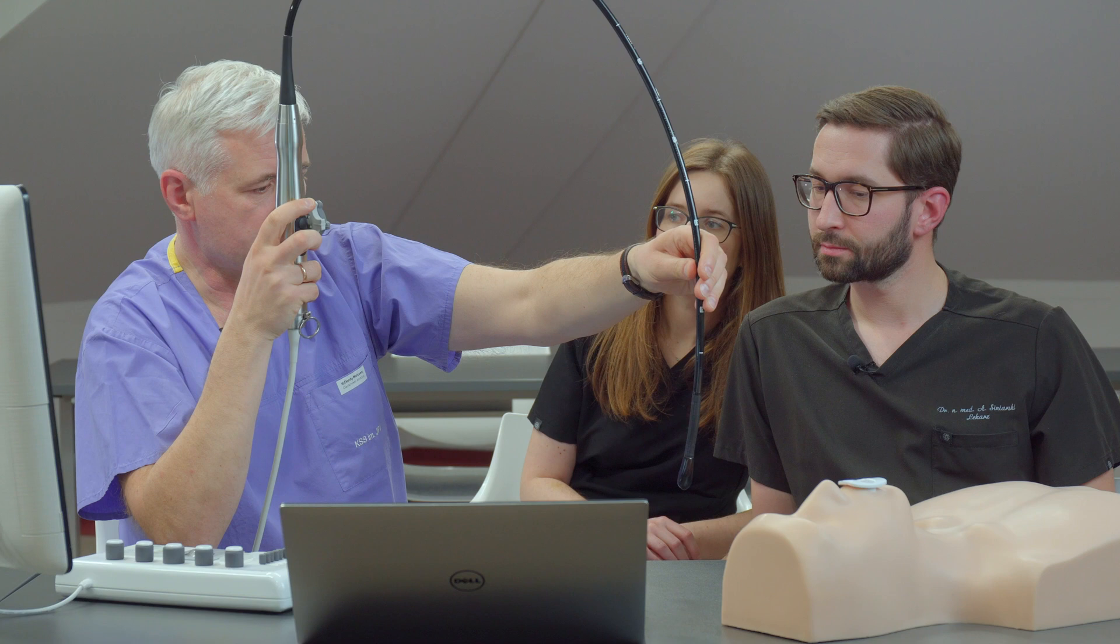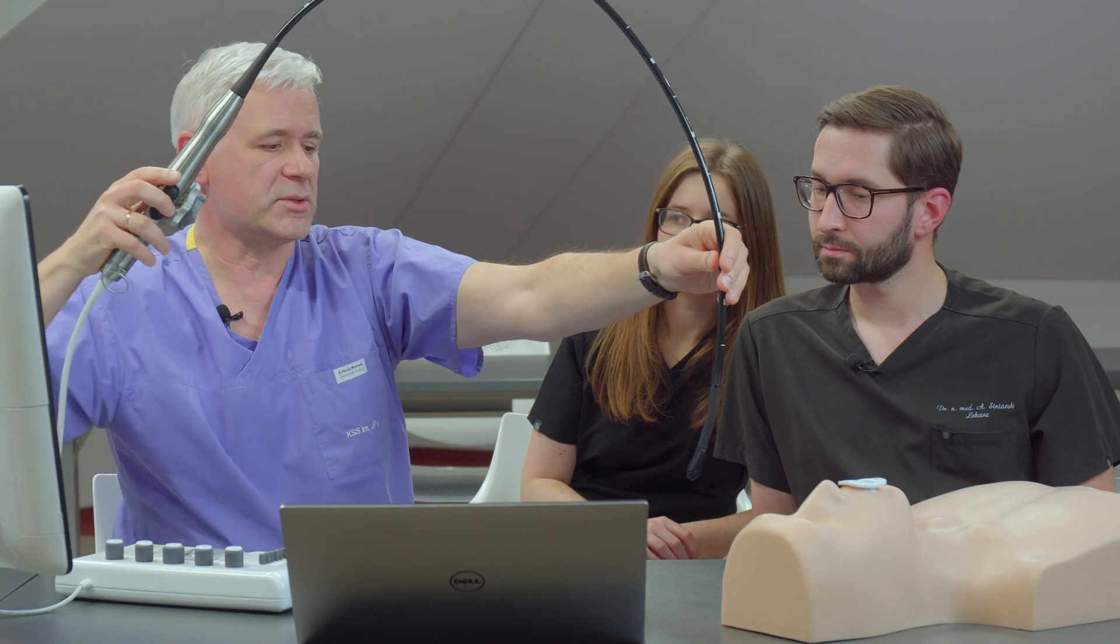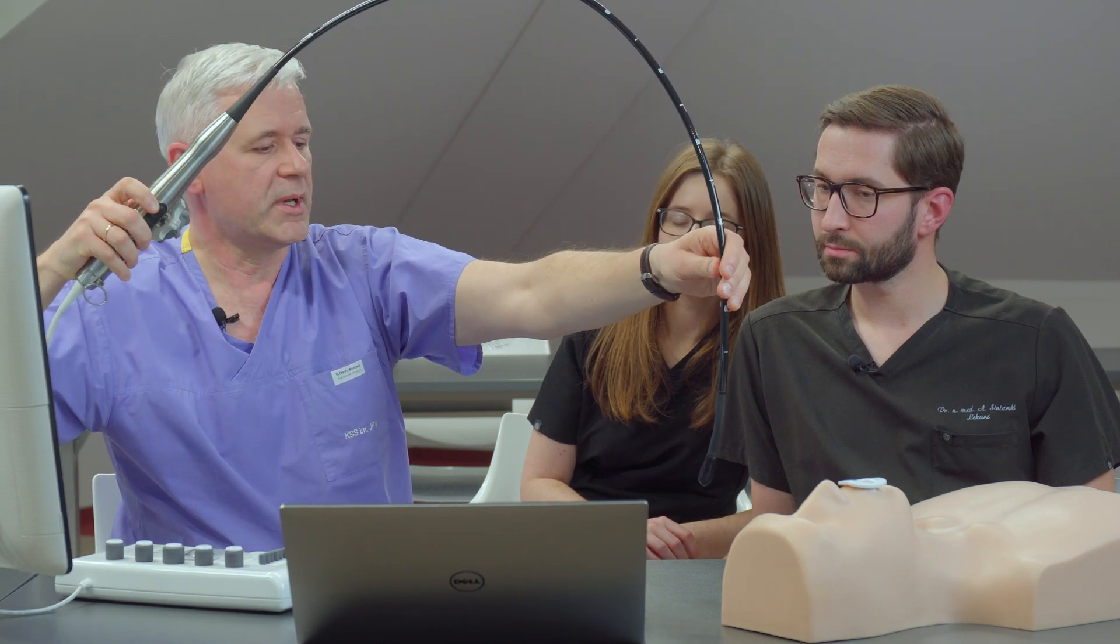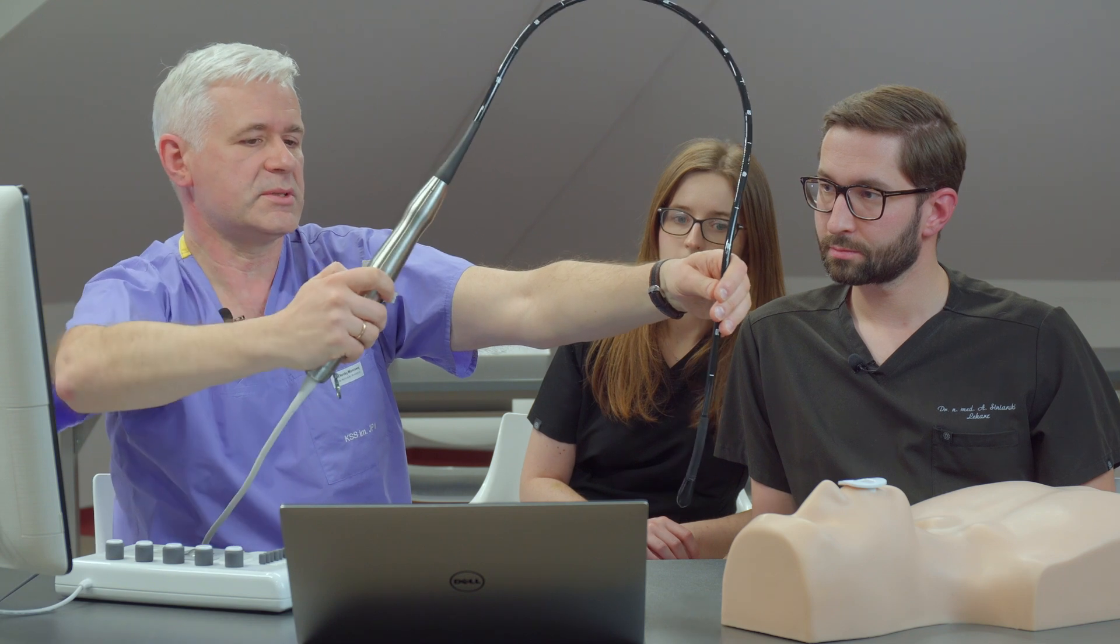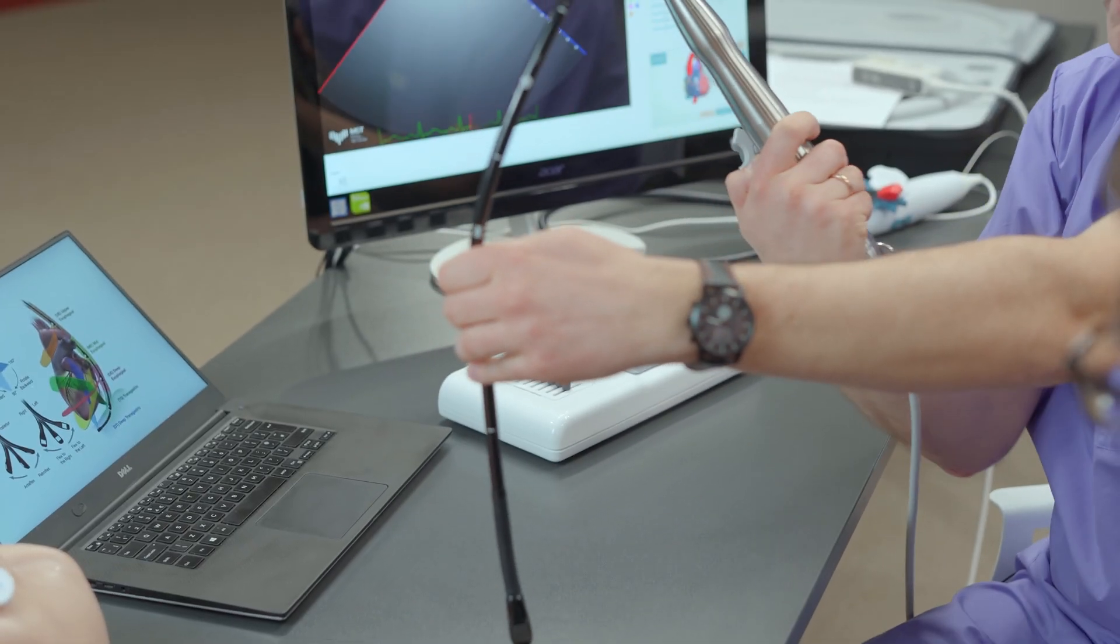The second motion you have to control is the rotation. You look at the probe here. If I turn this manipulator here, you see the probe is also turning.